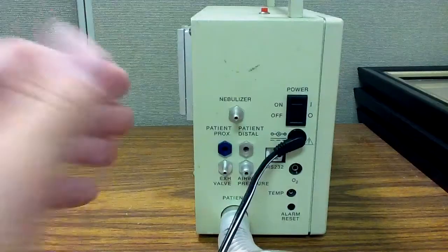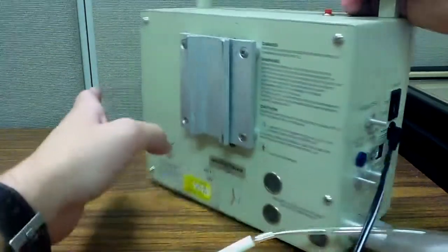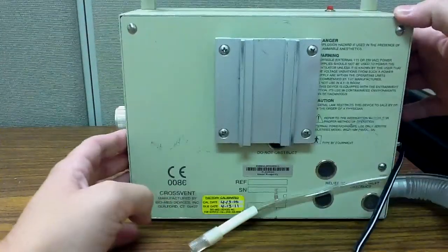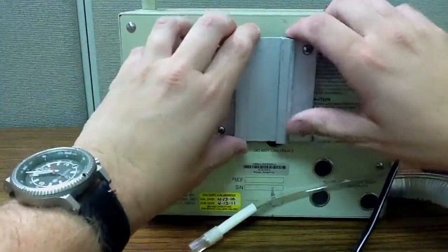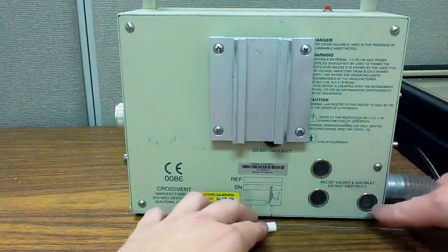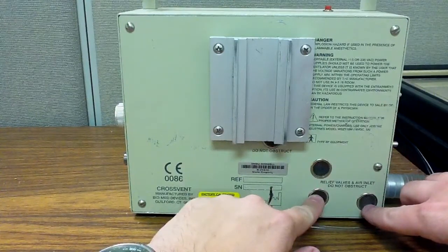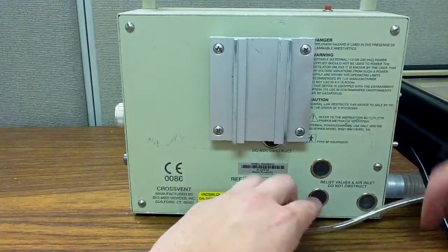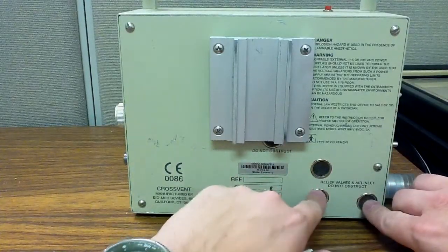Okay guys, that's it for the external characteristics. Actually, it's not. I apologize. I'll show you the back here. This is just one of many different kinds of mounts, and this is where the exhaled air from the patient, or not exhaled, but the relief valves, I'm sorry.